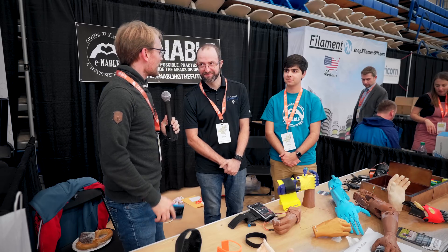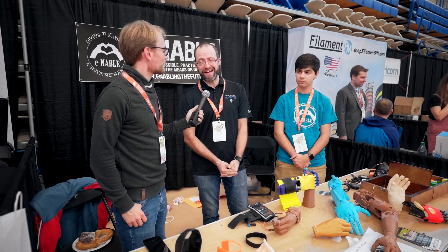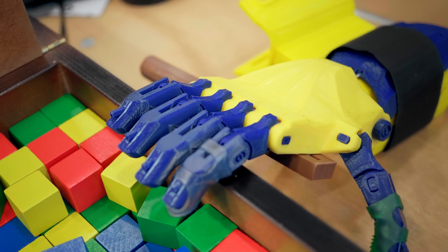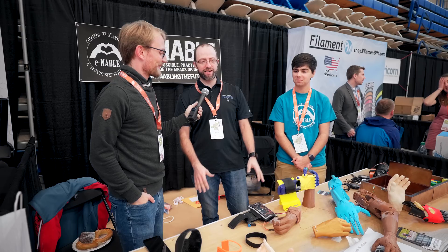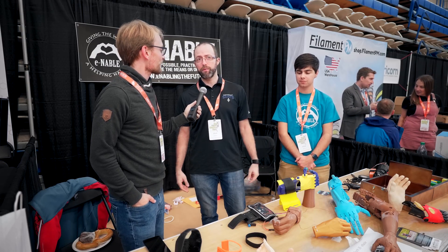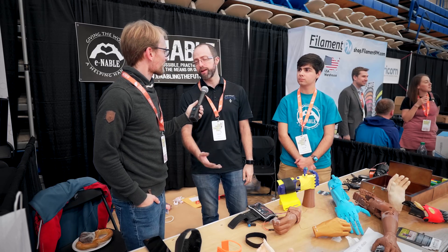Eric, so what is the Enable project? How did it come together? The Enable project is a group of just volunteers that have 3D printers all over the world. There's about 15,000 of us, and we communicate — it used to be Google+, that went away, but now we have a new page called the Enable Hub, where we all communicate with each other across countries to figure out who needs prosthetics and how we can get those prosthetics to the people that need them.